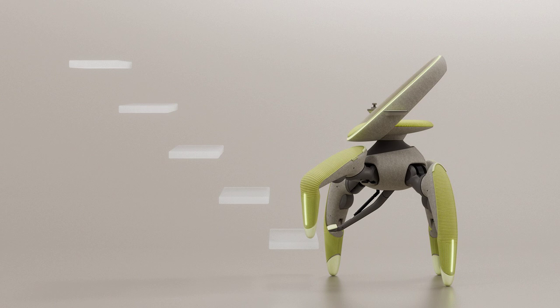The unit is powered by a long-lasting battery integrated behind the seat, providing a full day of operation. Conveniently, the battery is charged overnight using a standard wall outlet.